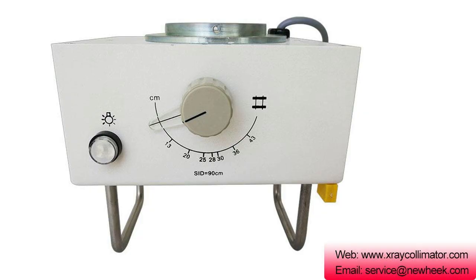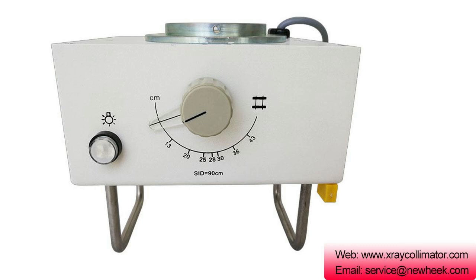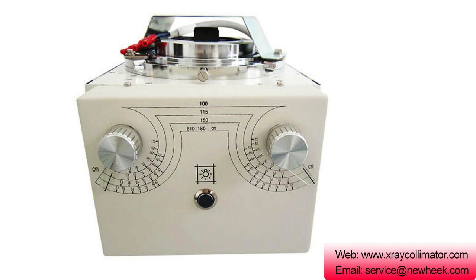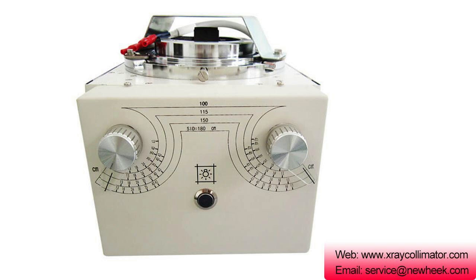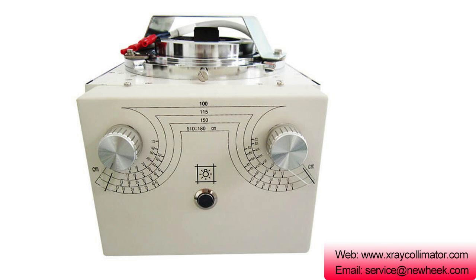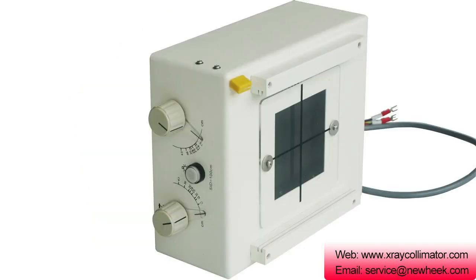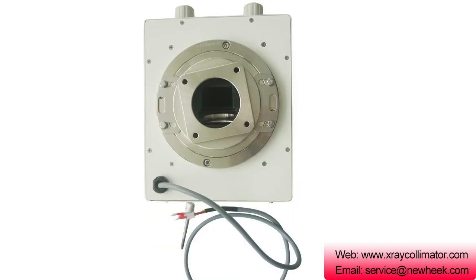An X-ray collimator is an electromechanical optical device installed at the output port of an X-ray tube. Its main function is to control the radiation field of the X-ray output, limit X-ray scattering as far as possible, control the X-ray range, and avoid unnecessary dose.